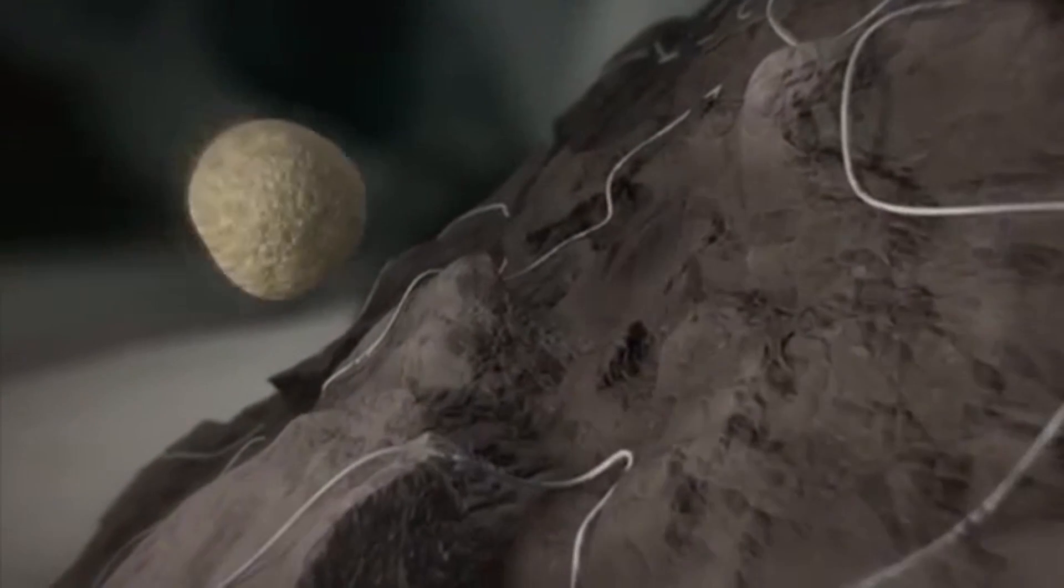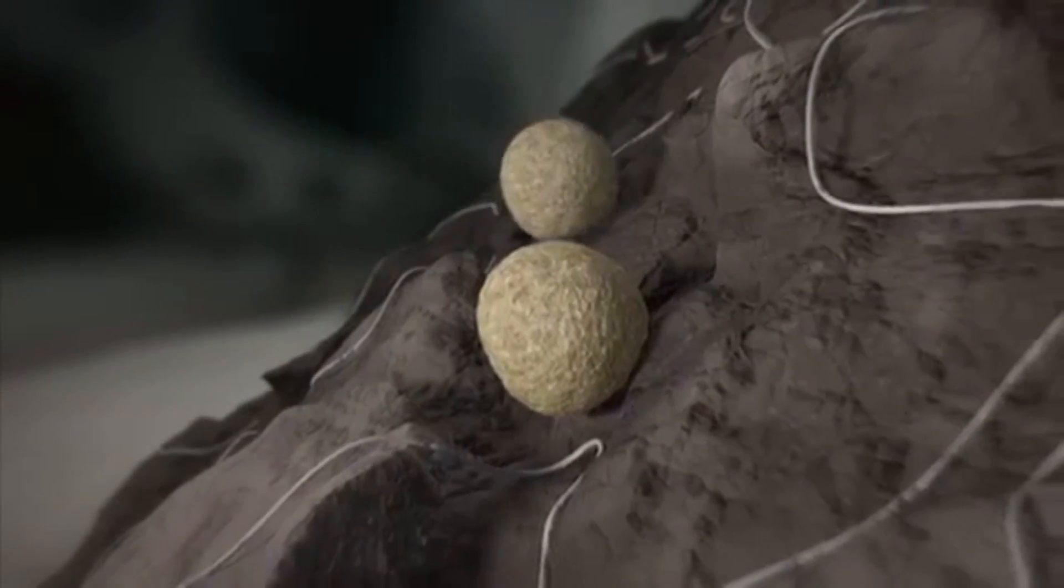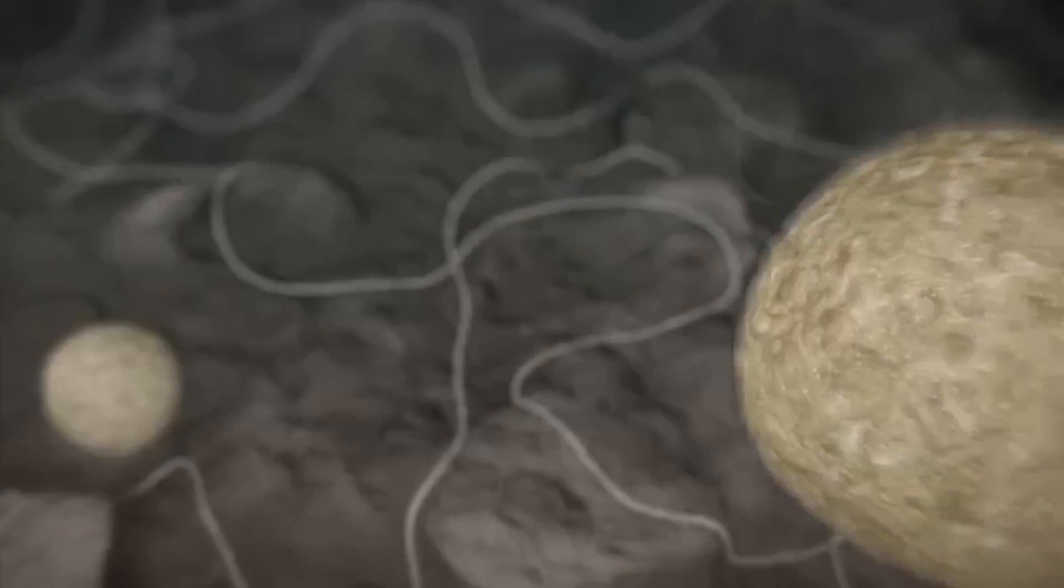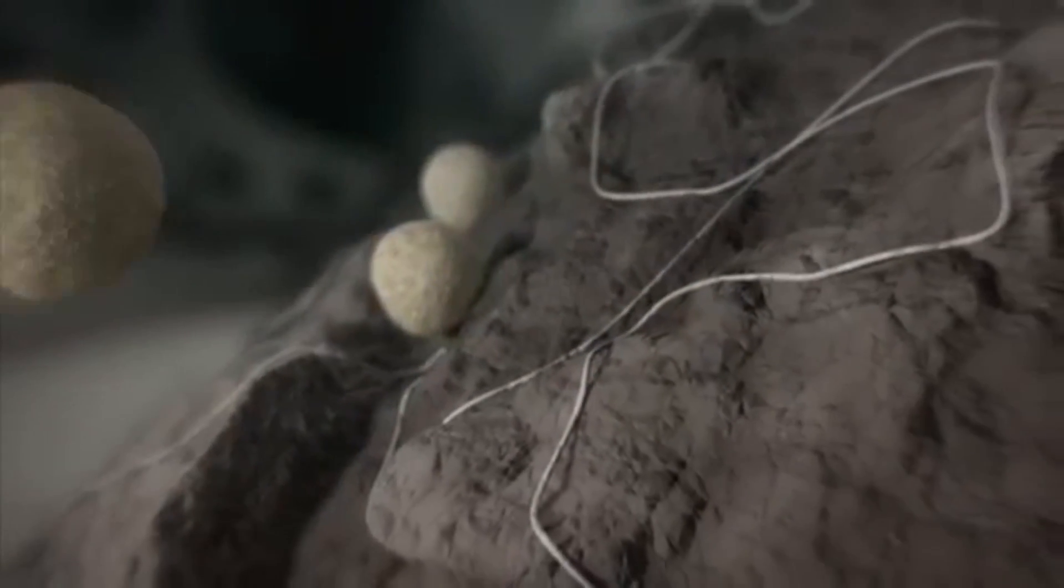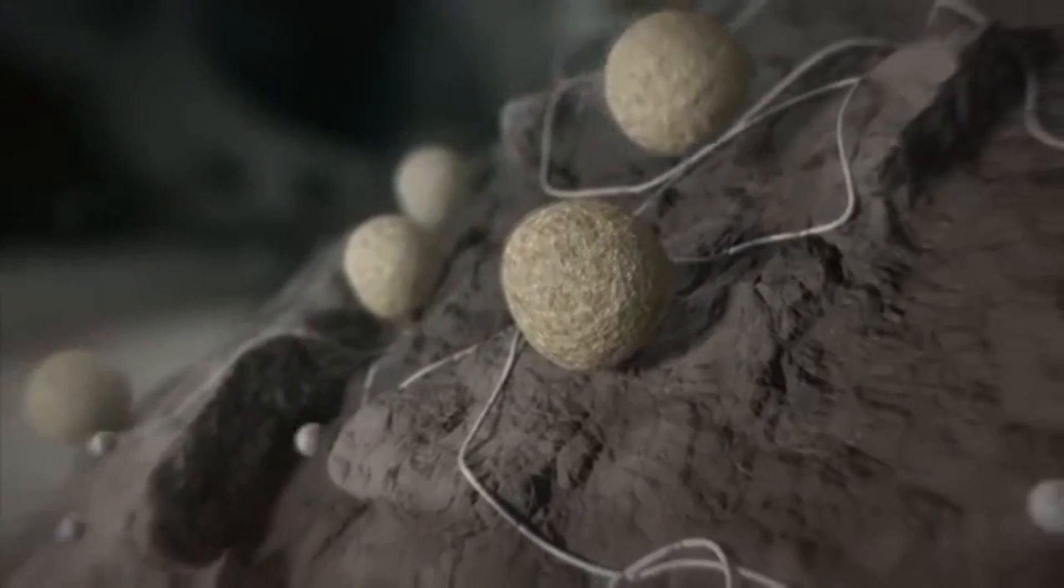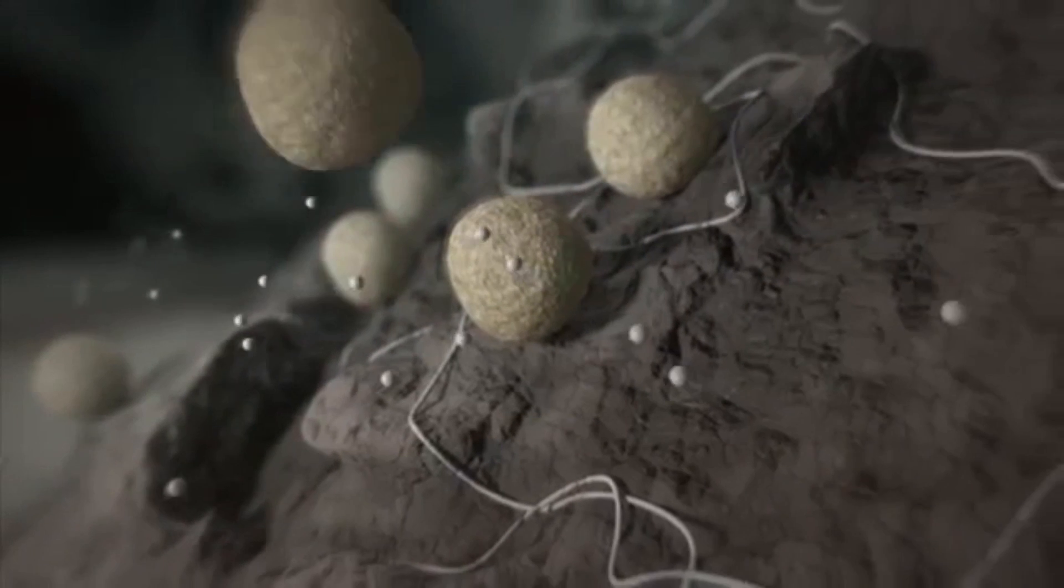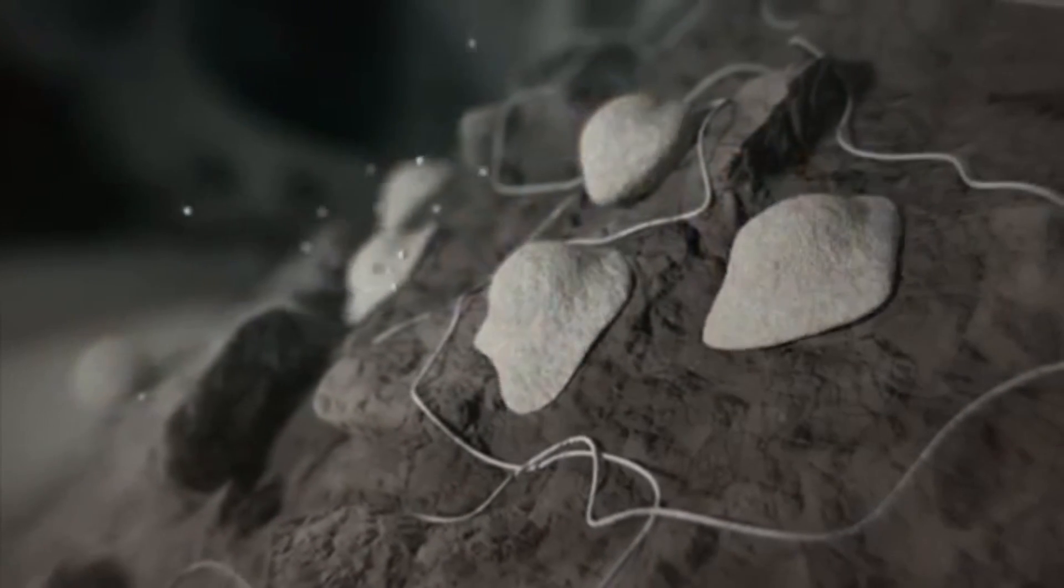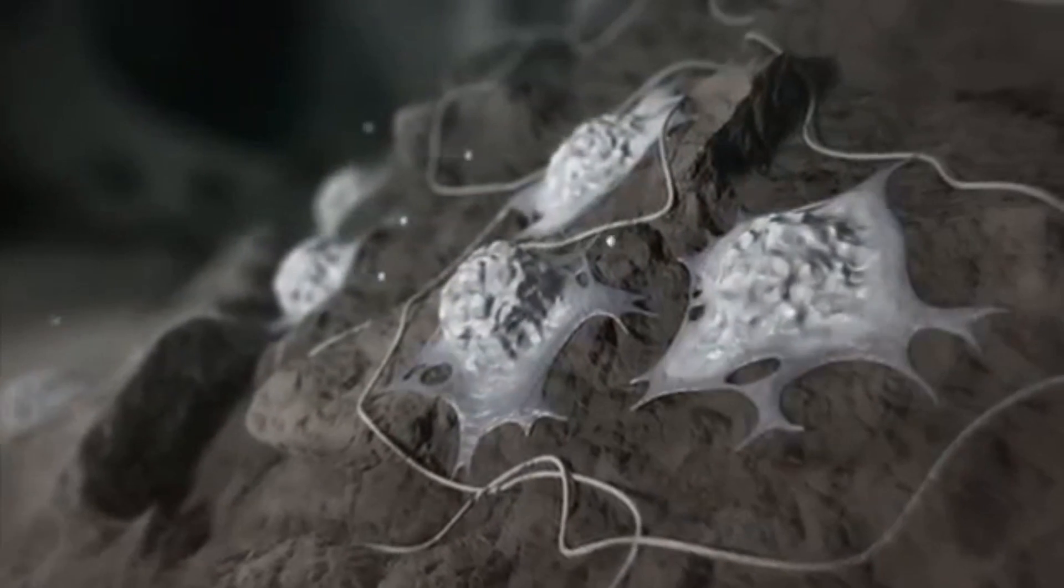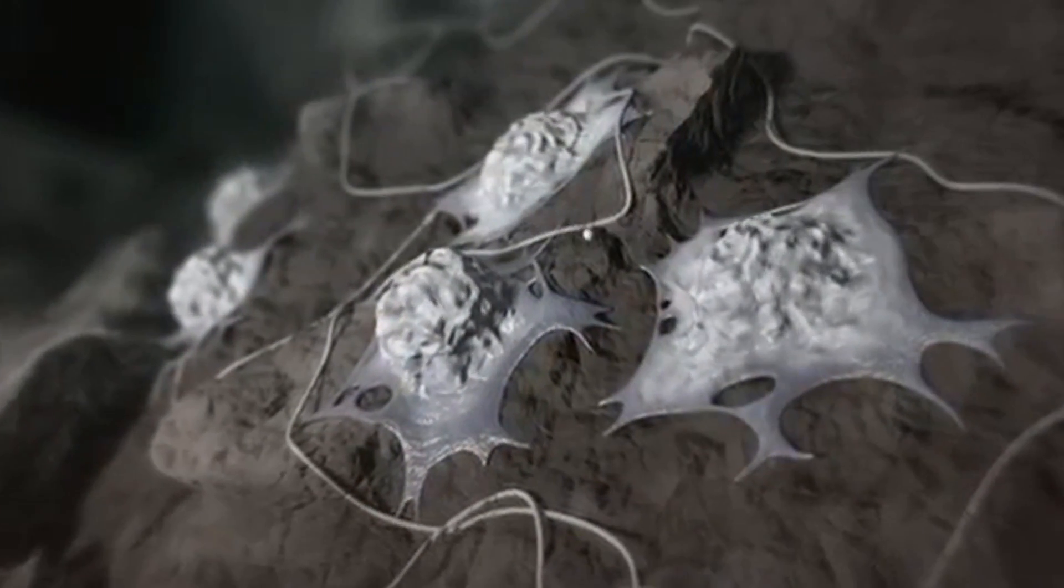Perivascular cells not only create new blood vessels, they also migrate toward existing trabeculae and to the implant surface where they differentiate into new osteoblasts under the influence of BMPs from the dissolved bone. The adsorbed proteins such as fibronectin have a crucial influence on the attachment of bone progenitor cells to the implant surface.